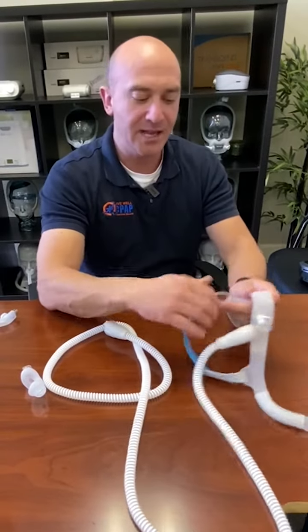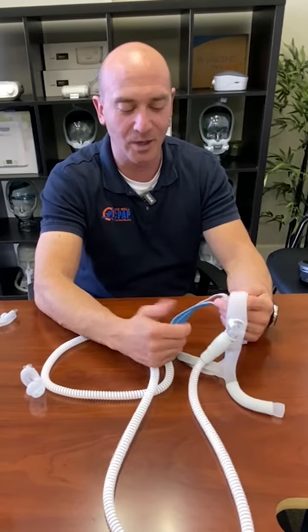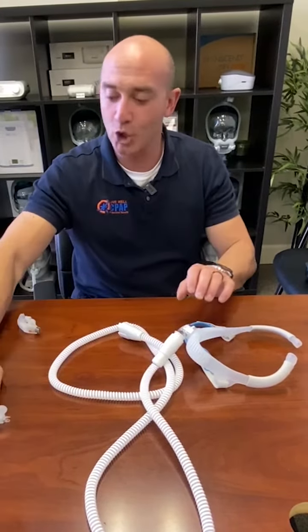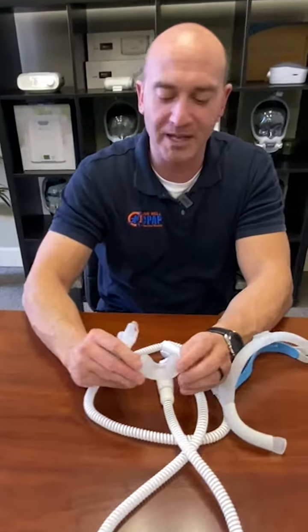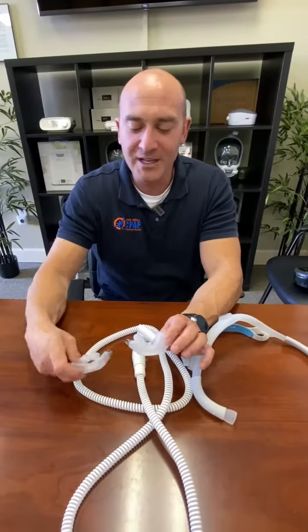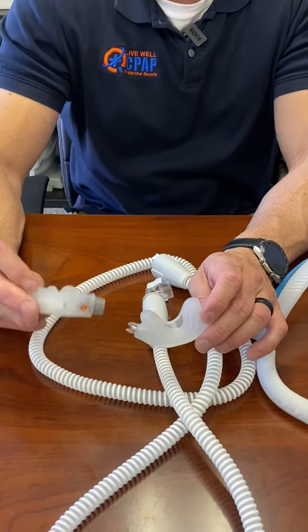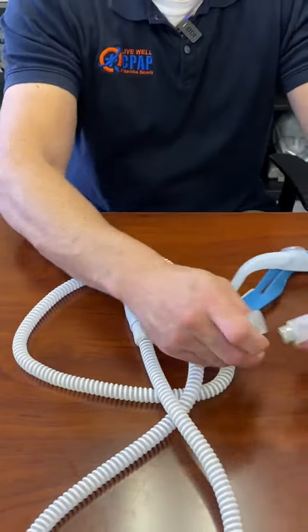This little vent will come out and you can wash that separately. You can wash this frame out as well. I would do at least daily — either take it in the shower with you or a quick wipe down — and then wash it once a week. The diffuser will pop back in place. Be careful: I've had some patients call in follow-up with a big leak in their system due to that diffuser popping out or not being all the way in there, so keep an eye on that.